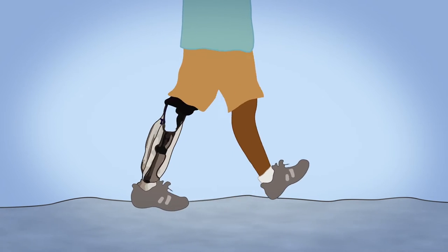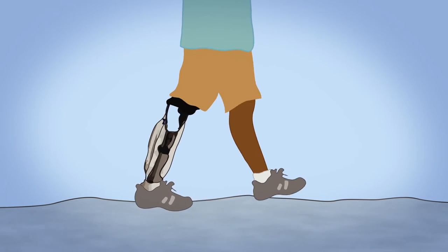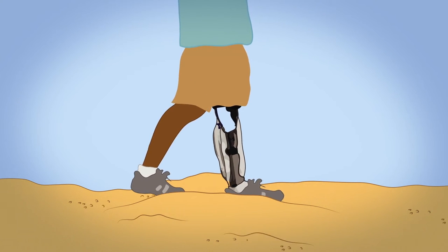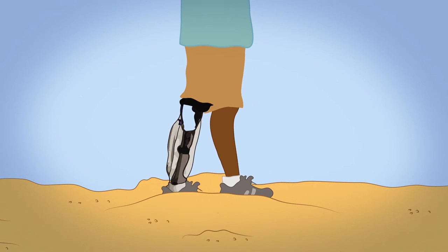For people with below-the-knee amputations, even the best prosthetics haven't been very good. Amputees often struggle to walk normally, and some have complained that it feels like their prosthetic leg is stepping in sand, even if they're walking on a sidewalk. But that's beginning to change.